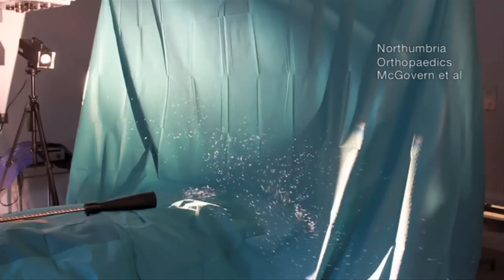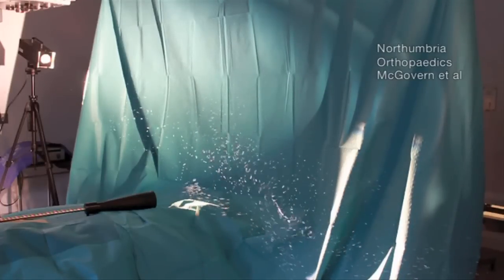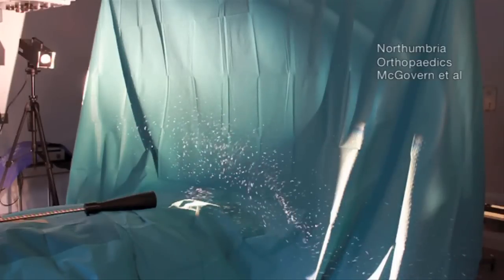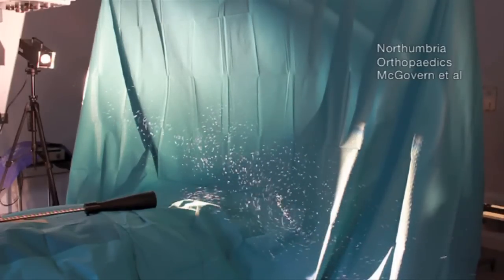We can put trace amounts of smoke particles near the floor and then with the heat turned on, the particles can be detected on top of the table at the surgical site with a laser particle counter.